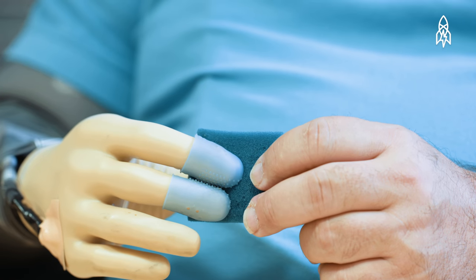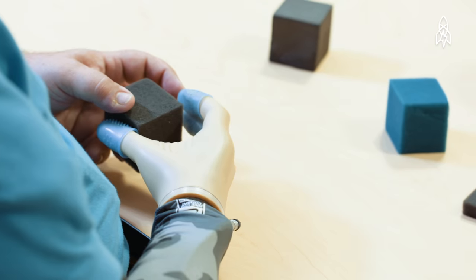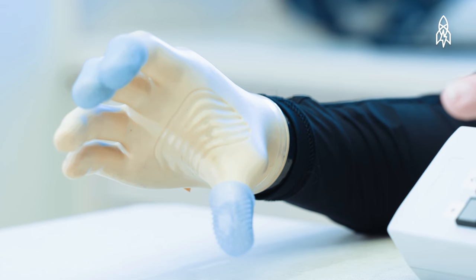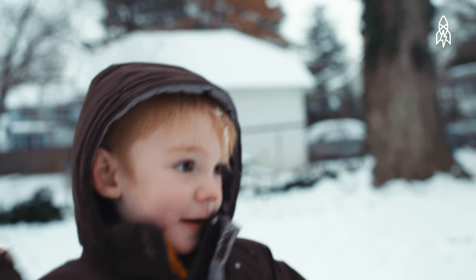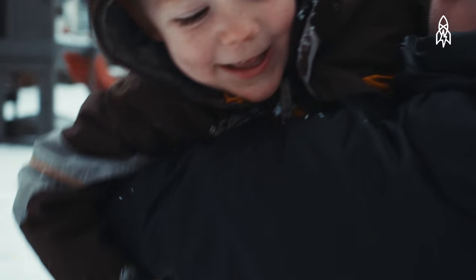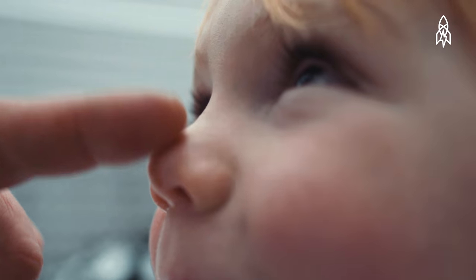As long as prostheses have been around, people have been really focusing on making it look like a hand and move like a hand. But a hand is not just a grabber. A hand is touch. It's touch that engages you with the world. It's touch that engages you with people. A prosthesis without touch is a tool. By giving touch, we're giving back a hand.